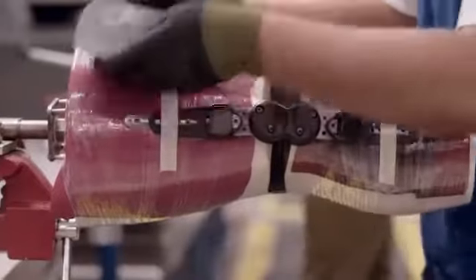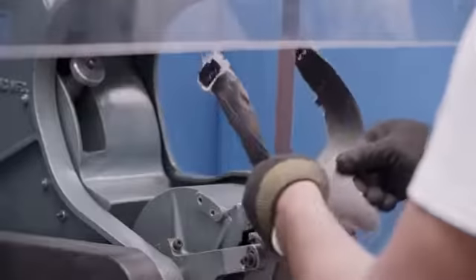CTI Truly Custom Ligament Knee Braces, as well as Unloader 1 and Unloader Truly Custom Osteoarthritis Knee Braces, are hand-sculpted to fit the anatomy of a single, unique individual like a glove.